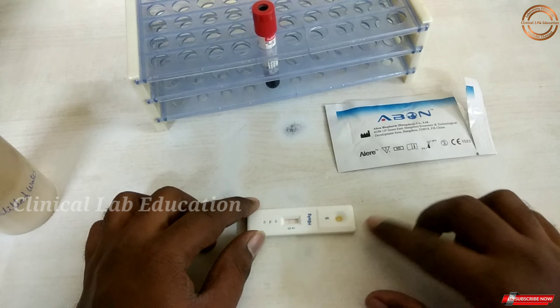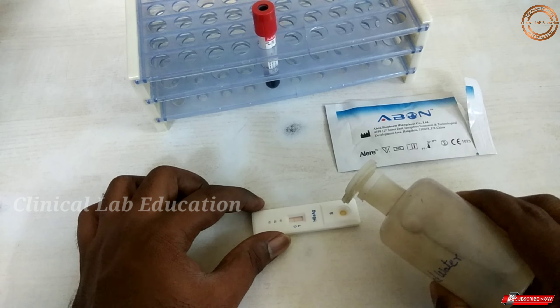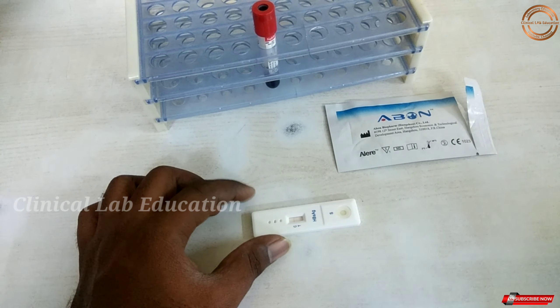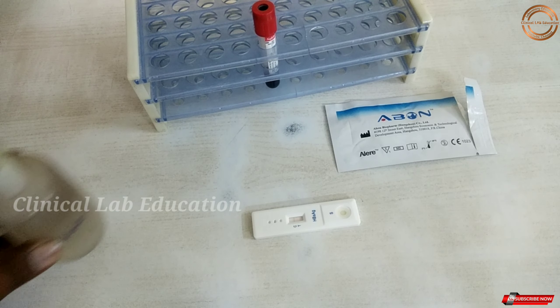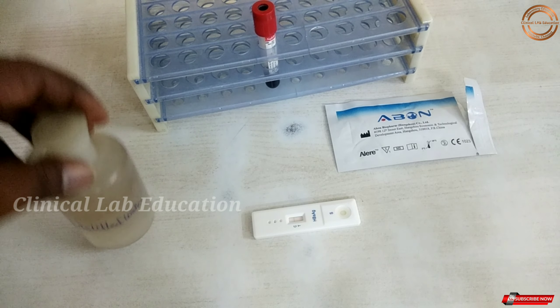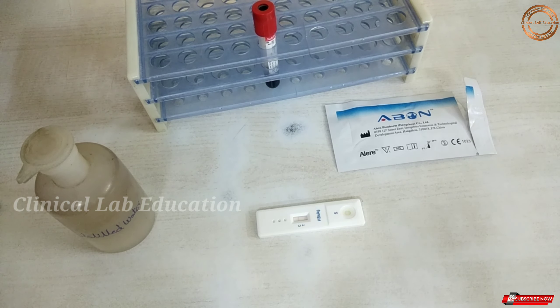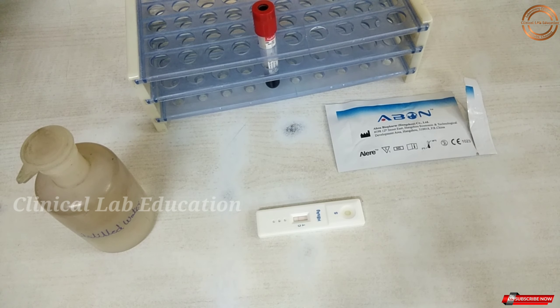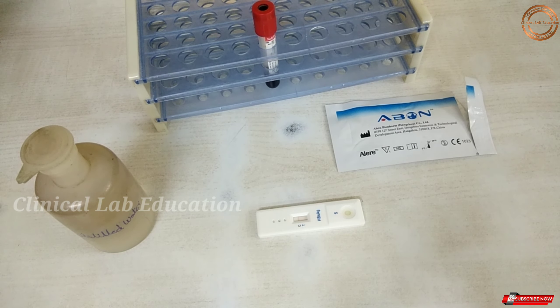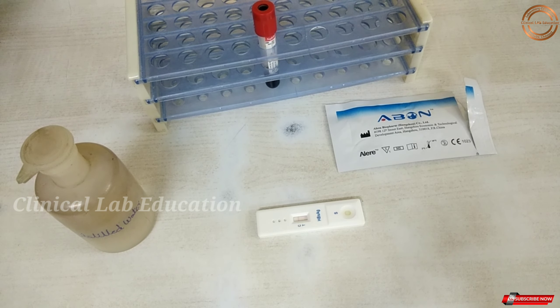Now we will use the patient sample with distilled water — 1, 2, or 3 drops applied to the card. There is the patient sample flowing through the card. Let's fast-forward to 10 minutes later.